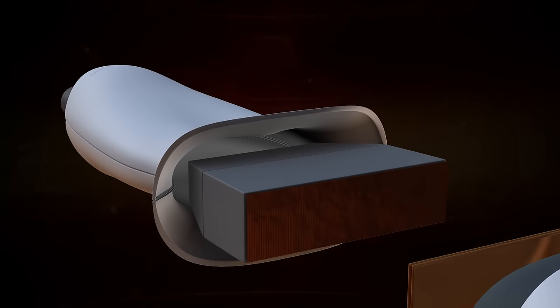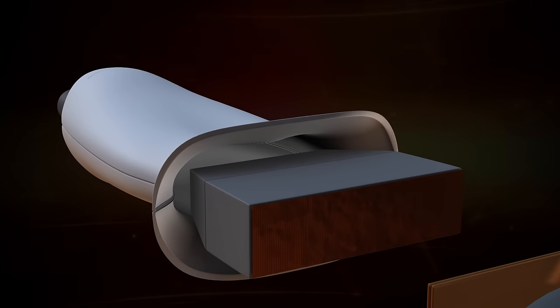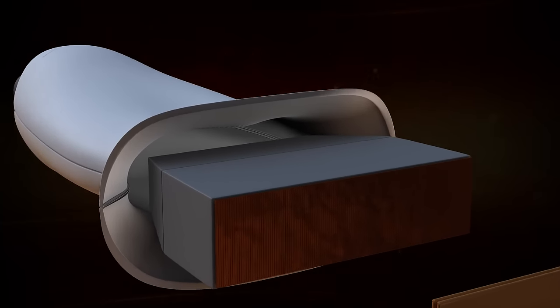The heart of most ultrasound systems is a device called a transducer, which uses an array of piezoelectric crystals. A piezoelectric crystal vibrates when an electric signal is applied, producing high-frequency sound pressure waves, which we call ultrasound.